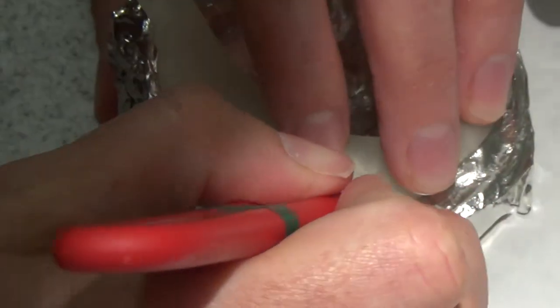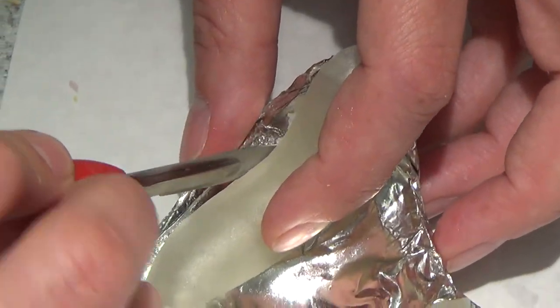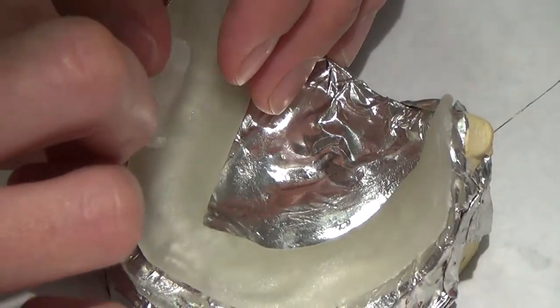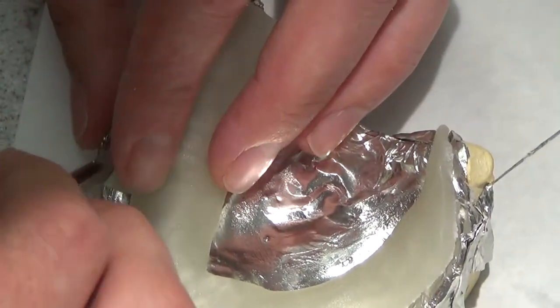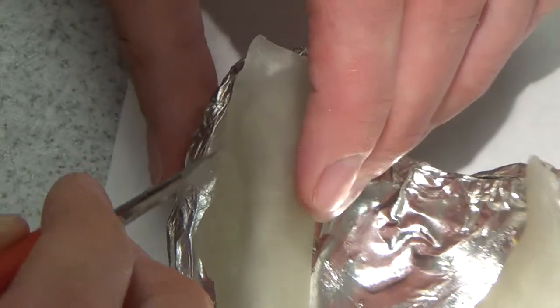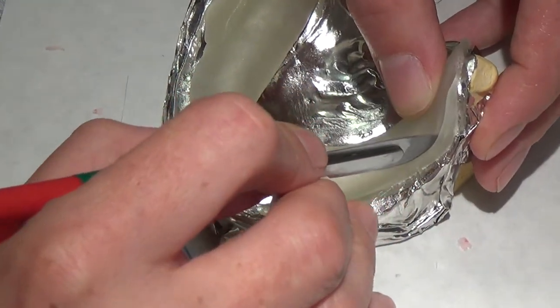I love doing this with a number 20 blade on a Bard-Parker handle — that's my favorite way to do it. I can get these edges much smoother. It's getting a little bit thin right there, so I'm going to add just a hair back on this buccal shelf, partially because I don't have a lot of thickness anywhere. I want to make sure I maintain contact there. I like the buccal shelf here, but it's too wide on this part, so I'm going to bring it down.